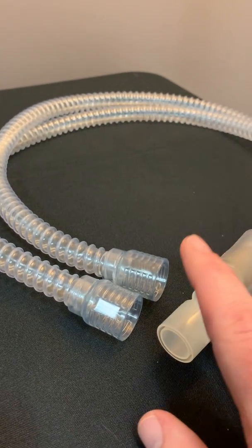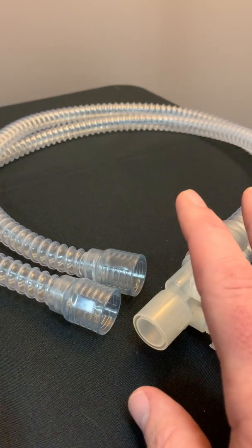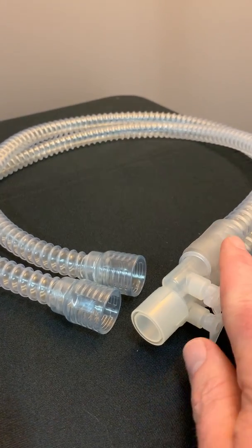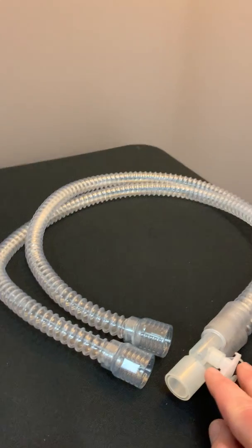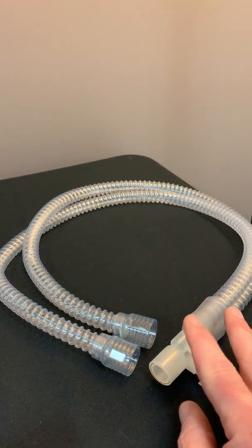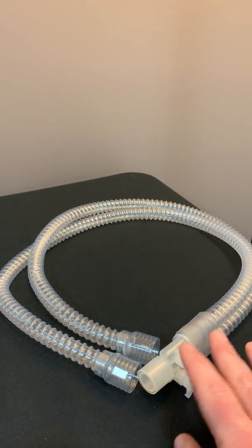So as long as the dual limb circuit that you attach to the Vivo 65 passes the pre-use test procedure, you can confidently use that type of circuit.